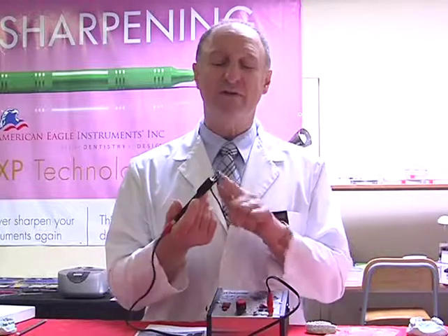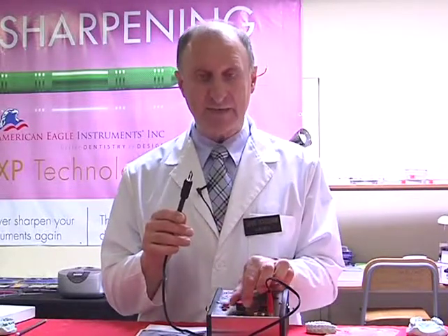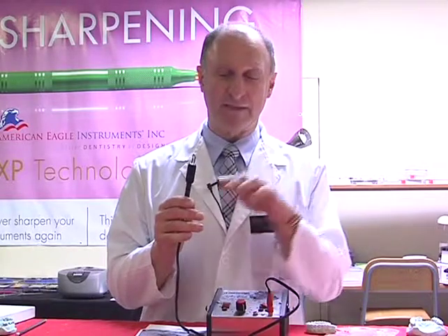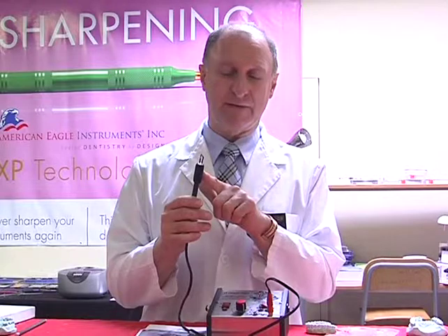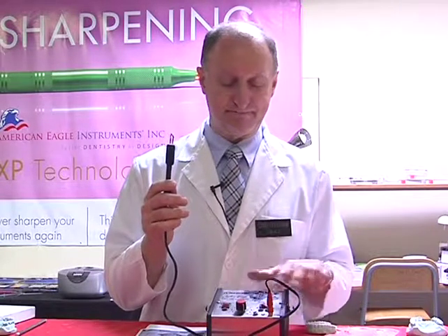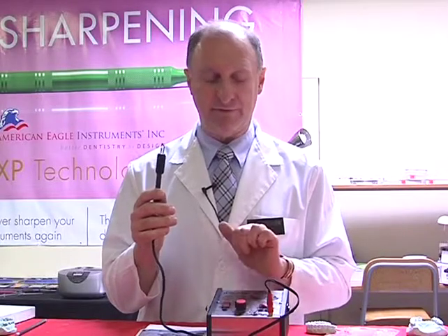If there was any residue left on the surface of the tip, what I normally do is turn this up to the full extreme of the heat, and that would just burn off any material that was caught on the end of the tip. It's a little bit like a self-cleaning oven when you raise the temperatures. So now we've got it nice and red hot. We're just making sure there's nothing left at all on the tip. At that point, our unit's ready to use for the next time around. So I can then turn off the temperature, turn it back down, and off.